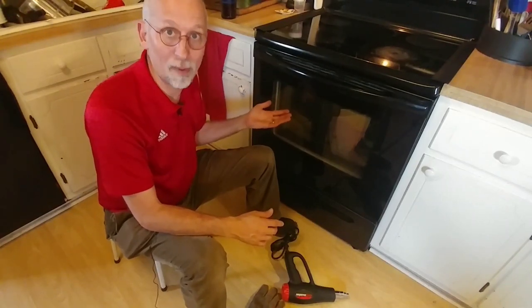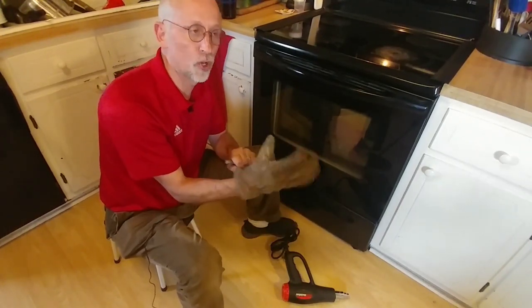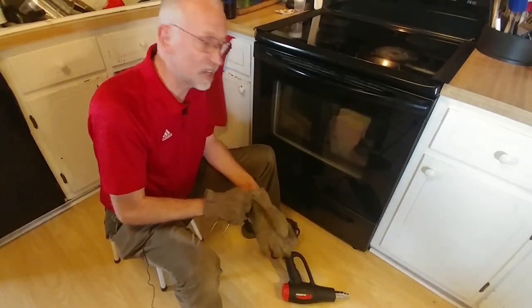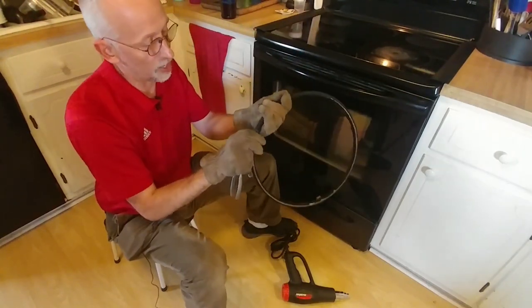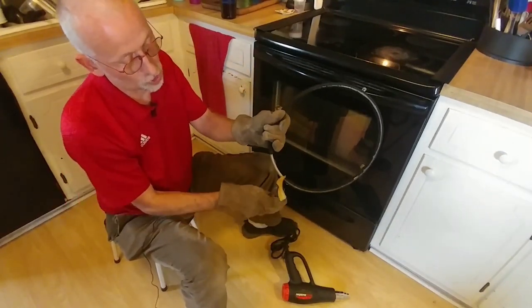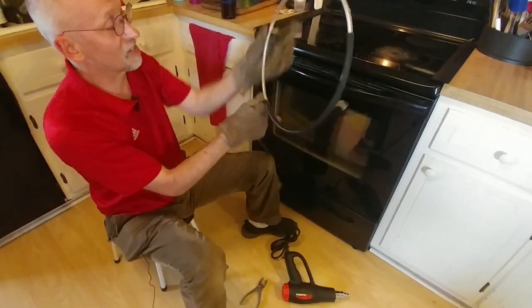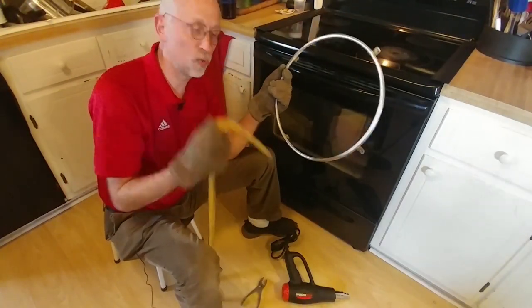We've had this push rim in the oven for about 10 minutes, so I'm going to take it out and show you how to remove it. You're going to want some good heavy duty gloves or an oven mitt so you don't burn your hands. Then you'll need a pair of pliers to get a hold of that rubber and peel it right off the rim. So the push rim is now warmed up. I'm looking for the place where the two rims come together with a seam. I was able to get a hold of this just with my hand in these gloves — you just give it a good hard pull and you'll notice it separates fairly easily and beautifully. Old rubber removed from the metal push ring.